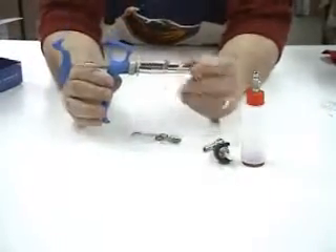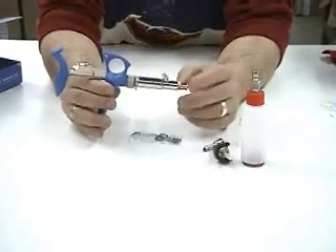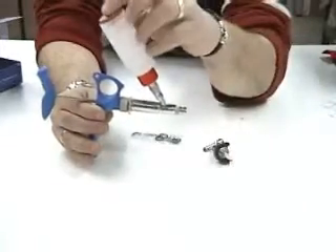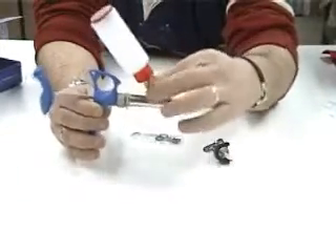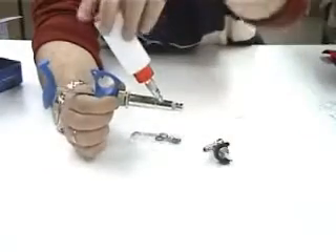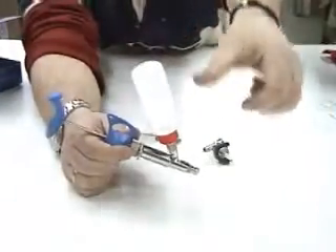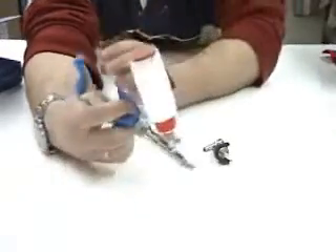The syringe is now set for a fixed dose of 2cc. If you want to use the feeding bottle, all you have to do is connect it here. It's a simple luer connector — it's very easy to refill the vaccine from here and then eject.